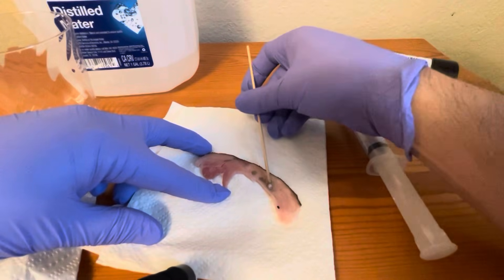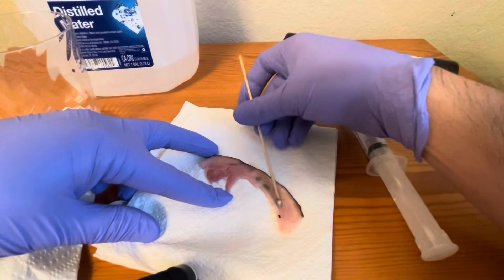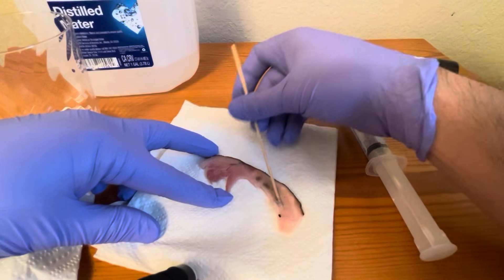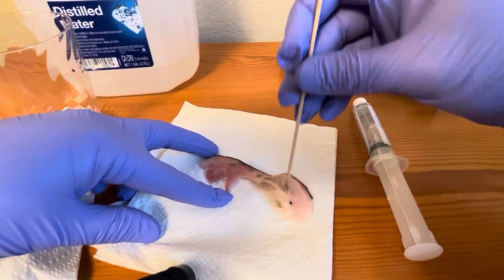As you can see here, when you're rubbing it, you're going to see the ham kind of fall apart and it starts burning right through it. With hyper-granulated tissue on the wound or the skin around a G-tube site, the hyper-granulation tissue will kind of just tear right off.